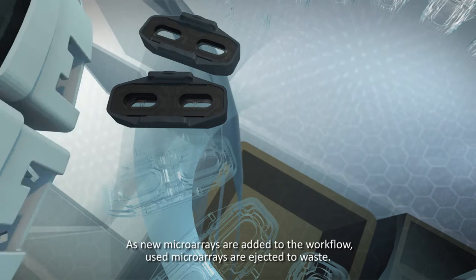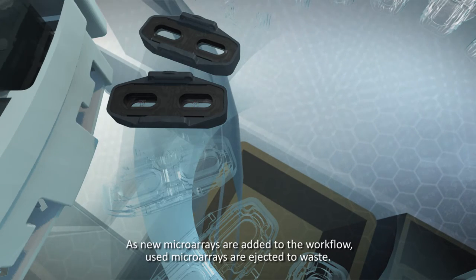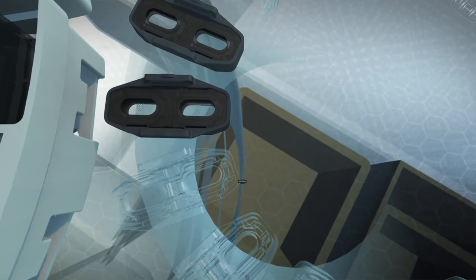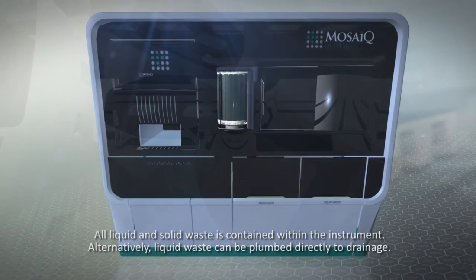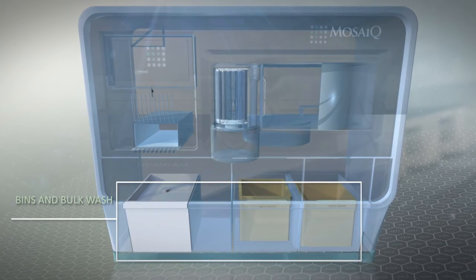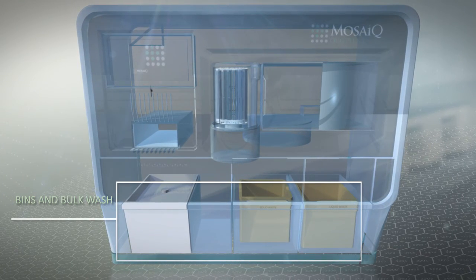As new microarrays are added to the workflow, used microarrays are ejected to waste. All liquid and solid waste is contained within the instrument. Alternatively, liquid waste can be plumbed directly to drainage.